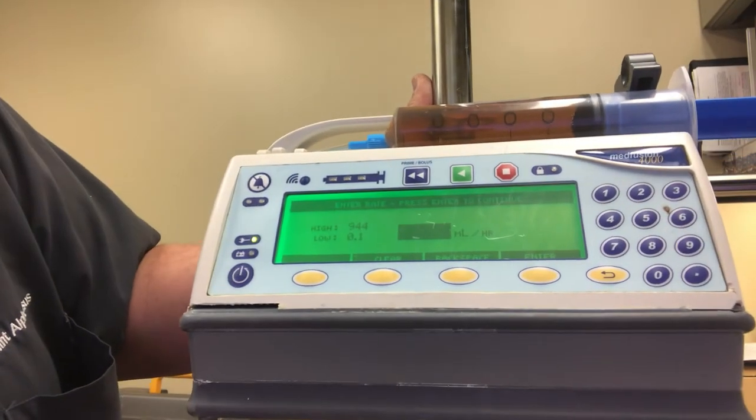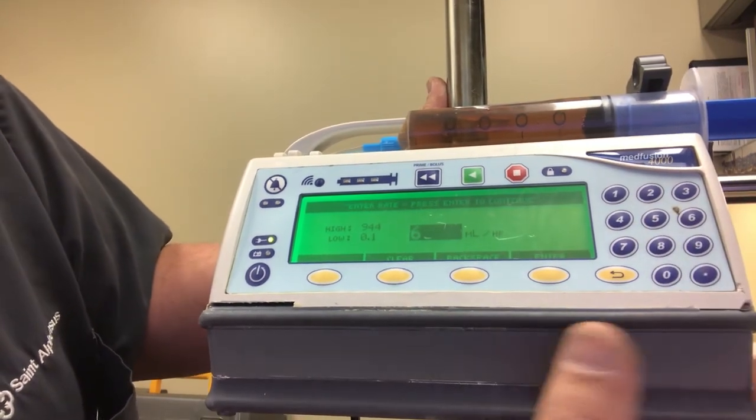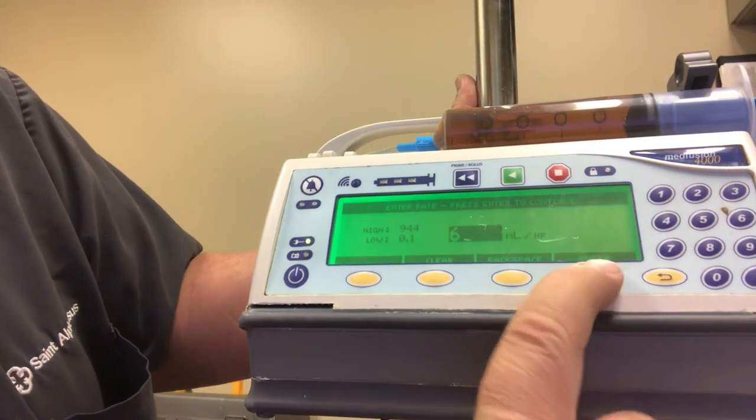Now it's going to ask us how many mils we want, I'll say we'll start with six, I press six over here, then I press enter.